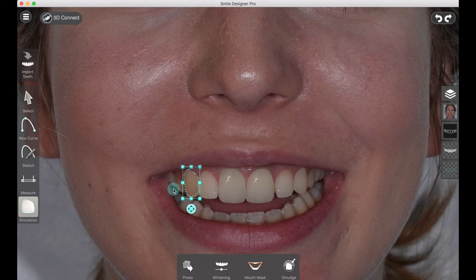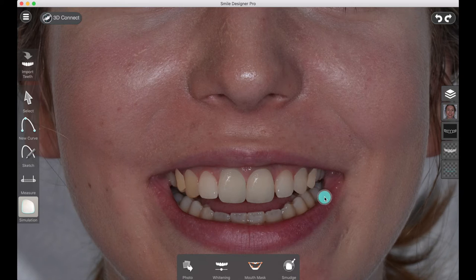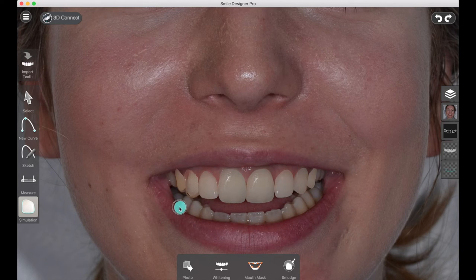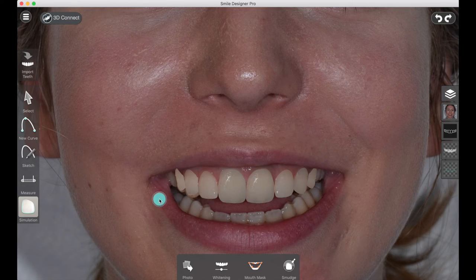We're going to go through each tooth and move this picture around. This is really important to know even if you're not using the patient's own photo as a simulation source, because when you start the simulation the size of the library tooth might not be correct for the shape that you designed either. You need to be familiar with repositioning and resizing the texture of the tooth when doing simulation. If the tooth material is not looking good for one particular tooth, we can use the movement handle to move the picture around and use the material from an adjacent tooth in order to get something that looks good.